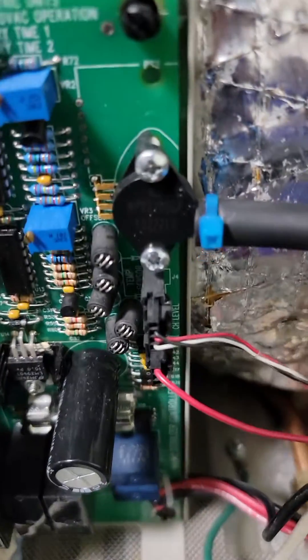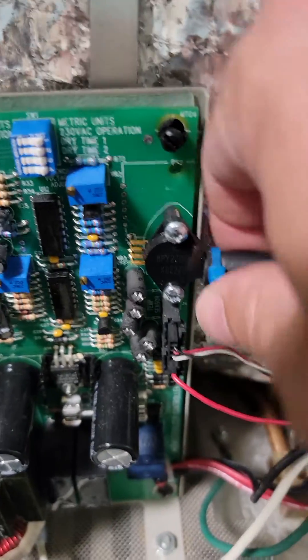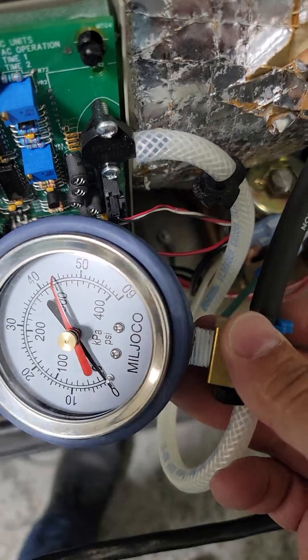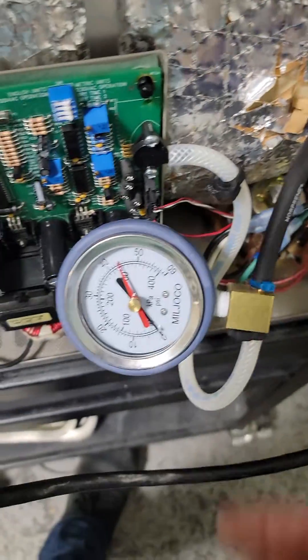Down here is our pressure sensor. The center has the exact same one; it's just not soldered to the board. Again, this does not apply to manual units. Pull this off and put the top on here, with the other end right there. Make sure you've got a good fitting. This cable tie is super loose, so you want to tighten that a little bit. There's your gauge.